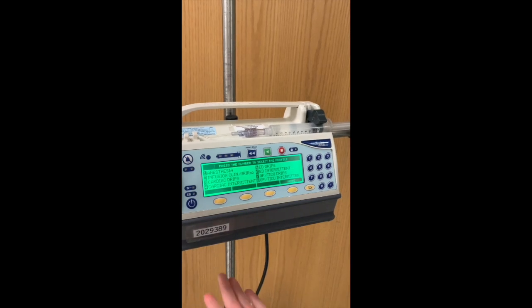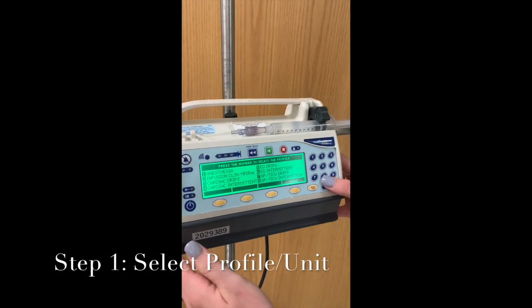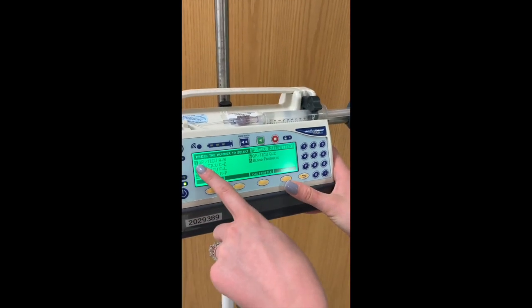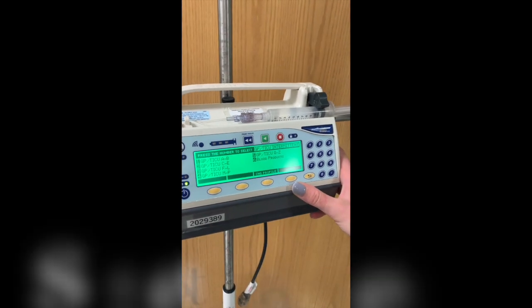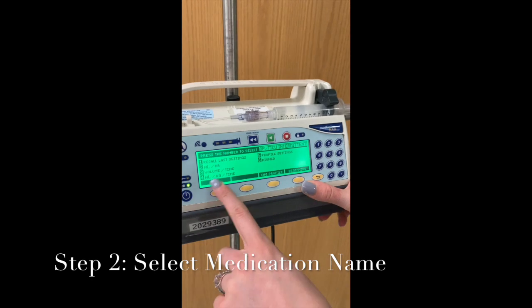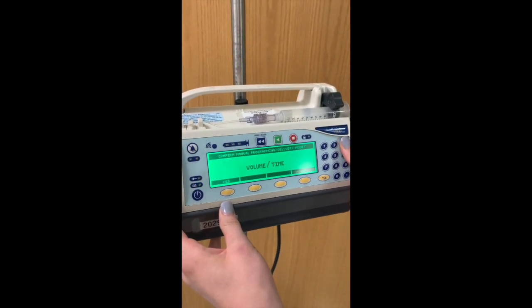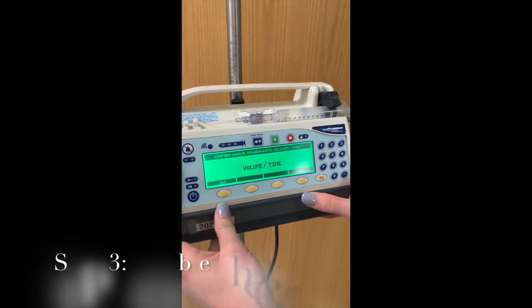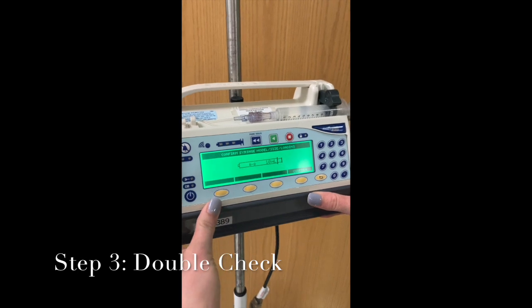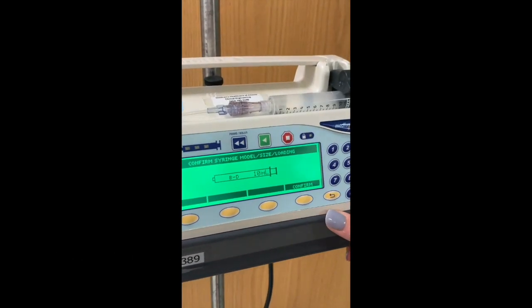So it'll ask you what profile you're in. For these purposes, we'll do general patient care. So you can select your medication based on its name alphabetically. For the purposes of this, I'm just gonna do volume over time. So it'll ask you, okay, are you sure you wanna enter your medication using volume over time? We're gonna click yes.